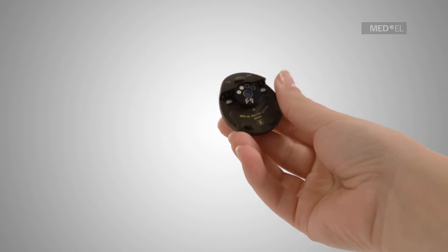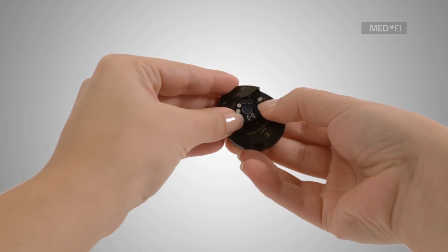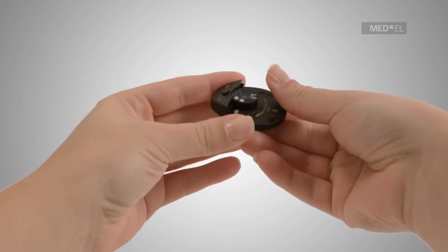Once the battery pack has been removed, unlock the magnet by rotating till the arrow meets the unlock sign.